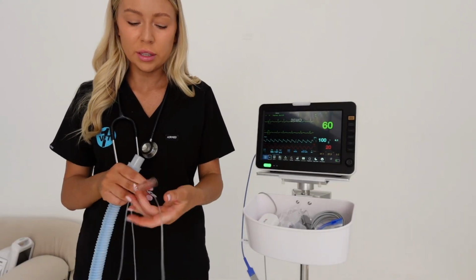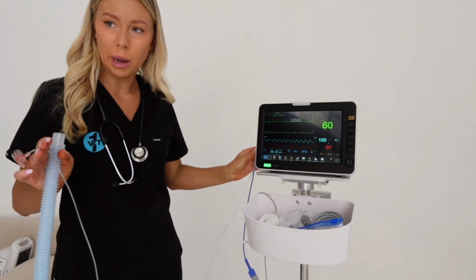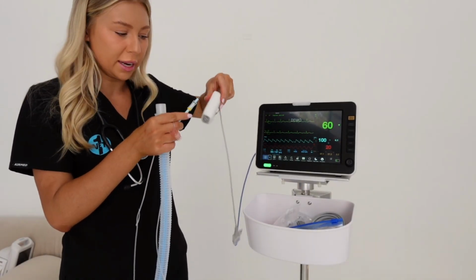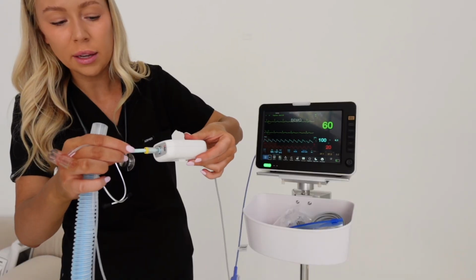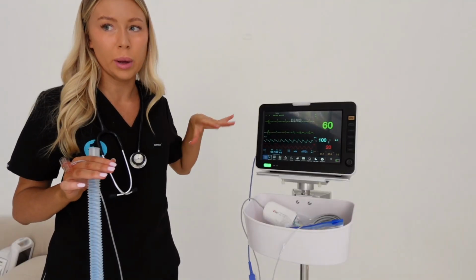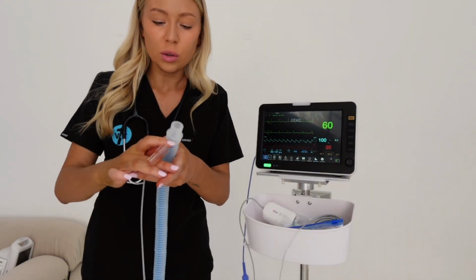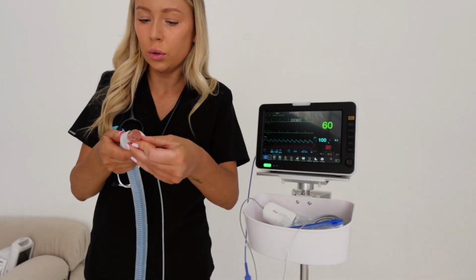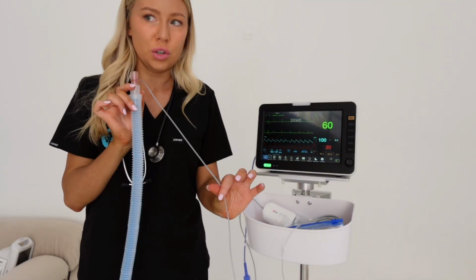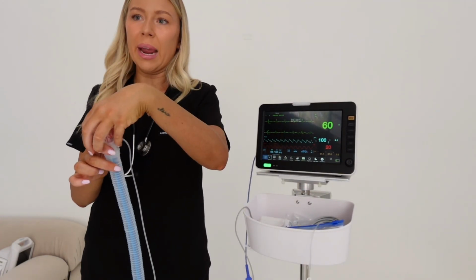Looking at a side stream version, this is a sample line. This sample line attaches to my monitoring machine here, so it's got a little side stream. This is like the computer component that gets that reading. I'm just going to plug that into here. So that's attached. Sometimes you've got a part on your anaesthetic monitoring trolley where it will clip onto. The end of the line then comes down and attaches to my breathing circuit and to my endotracheal tube. So this is called a side stream. I would think of this as side to the monitor, and the other one is main, attached to the patient.